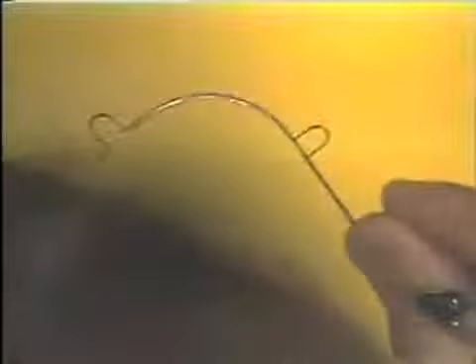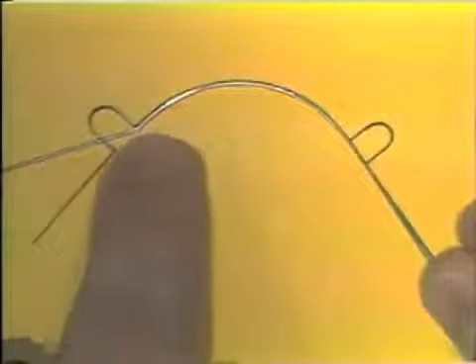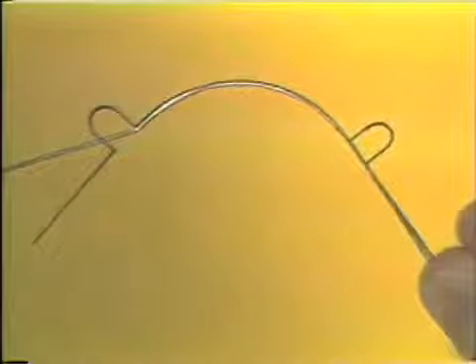At this point, the wire is tried back on the pattern to be sure that you're making a bend in the correct position. Control of plane and space is important at this time, too. The wire contacts the table all the way around the curved portion, and it leaves the table at the point where you just put the bend in.